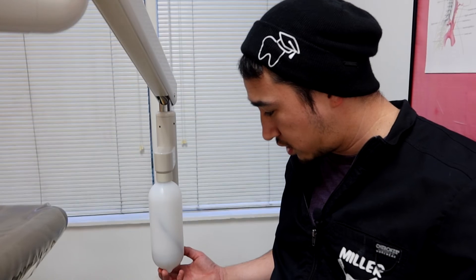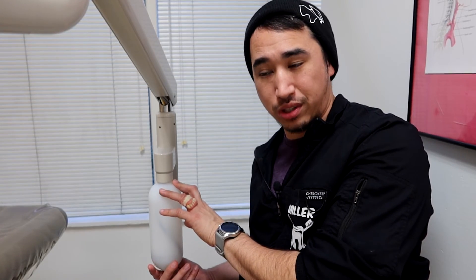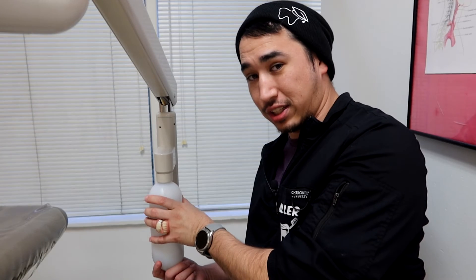Another issue causing no water is an empty water bottle. Follow the arm up and over to check it; you can give it a little tap to feel for emptiness or give it a gentle shake. If the water level is low, it's time for a replacement. When taking it apart, turn off the master switch first — otherwise you'll hear a continuous hiss that, as someone once said, sounds like the summoning of demons from the underworld.